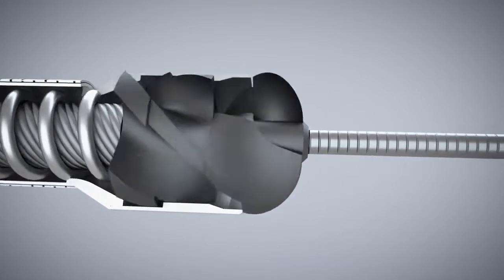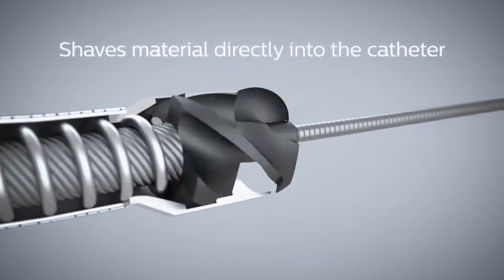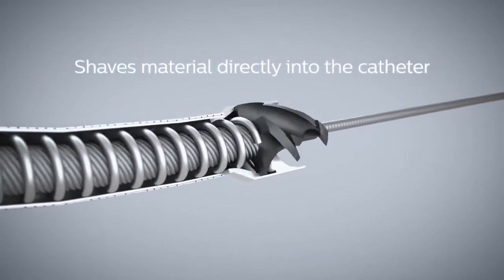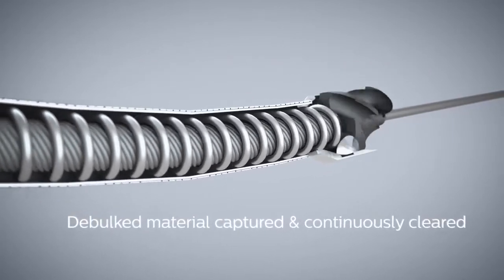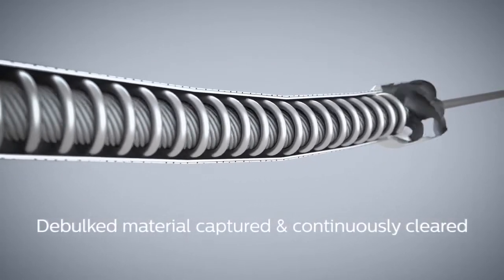This cutting element has been uniquely designed so that the material is shaved directly into the catheter where it is captured and continuously cleared by an internal Archimedes screw.